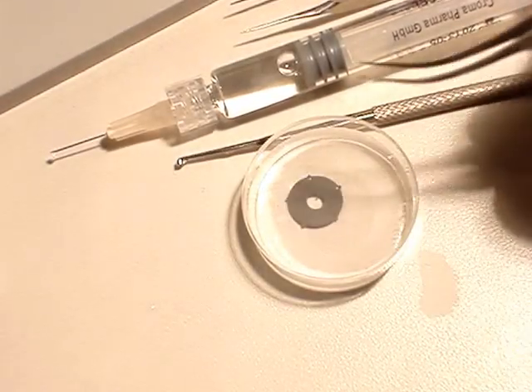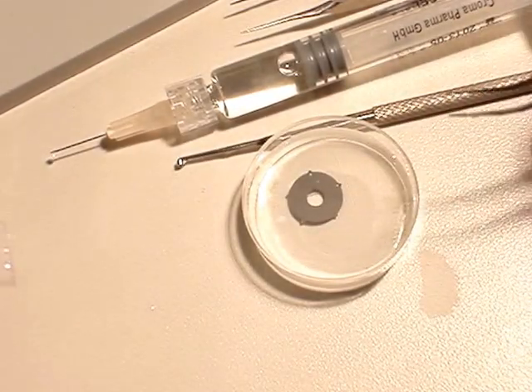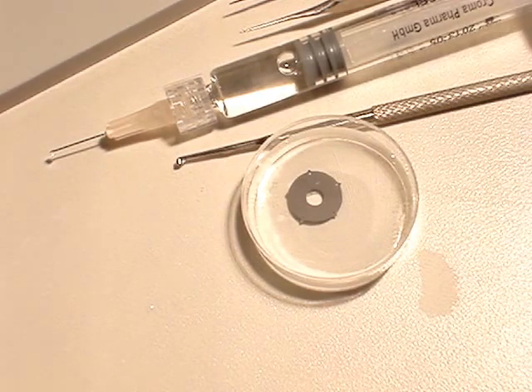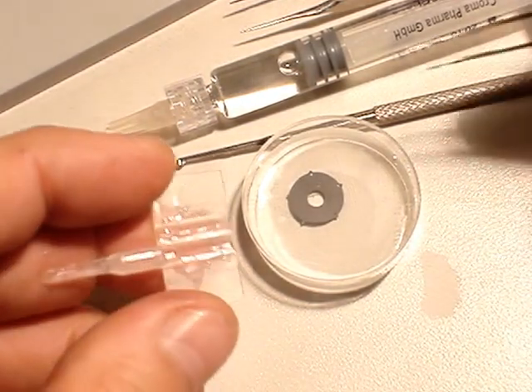This is the way we fold the lens, the implant, without touching it.